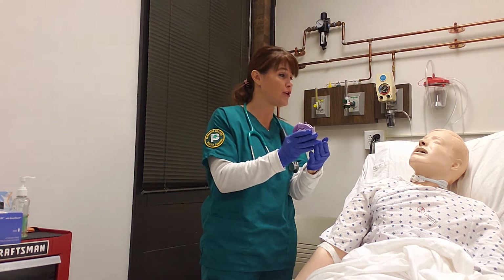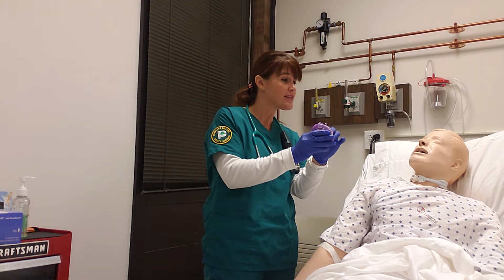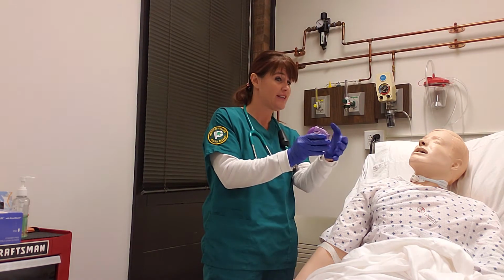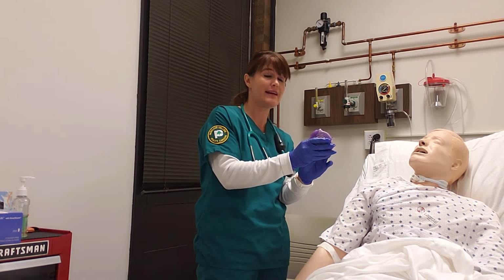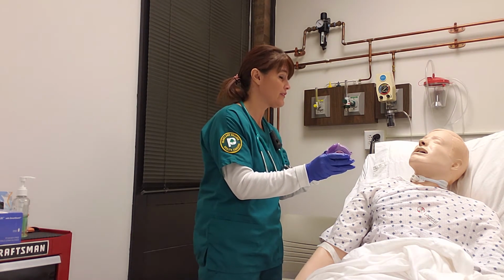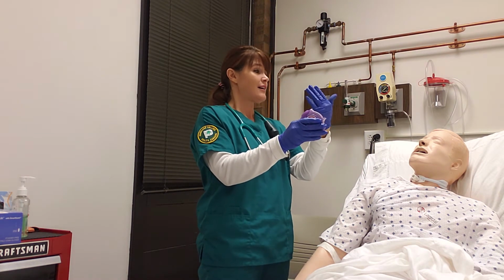Okay, so you opened it up, you heard the click. Your medicine is now sitting in this chamber. Now there's a second click you're going to want to make happen. Take this, pull it down. Hear that? That means your medicine is now ready to be inhaled. This is breath activated. There's nothing to push. You're just going to suck the medicine out.